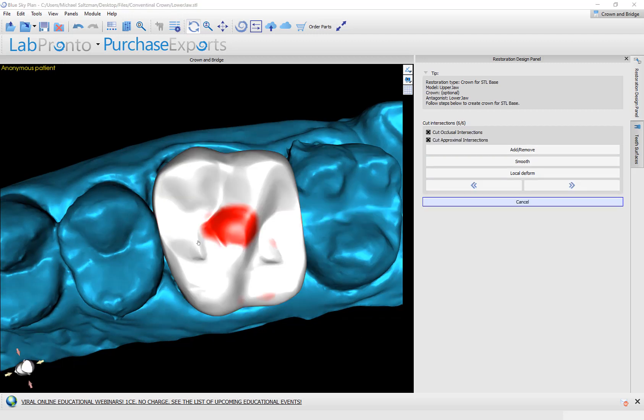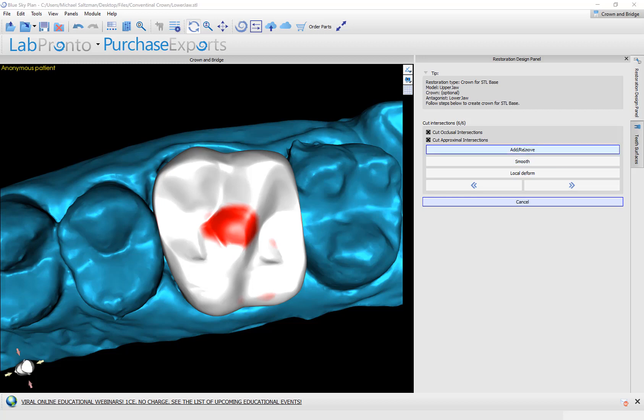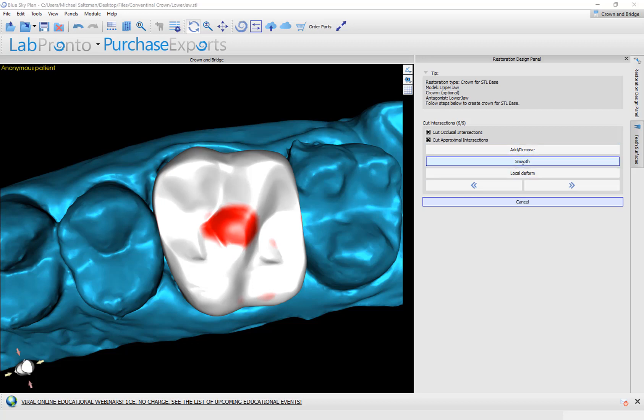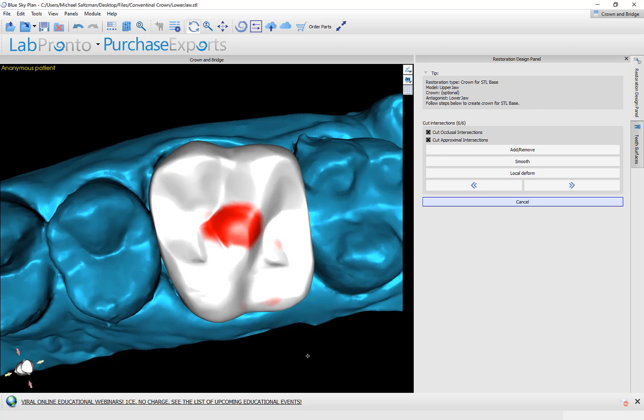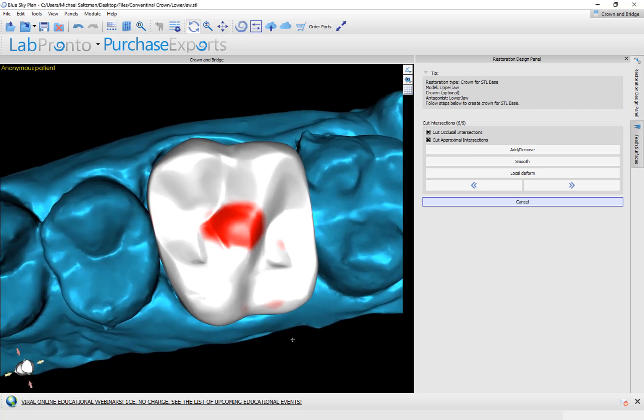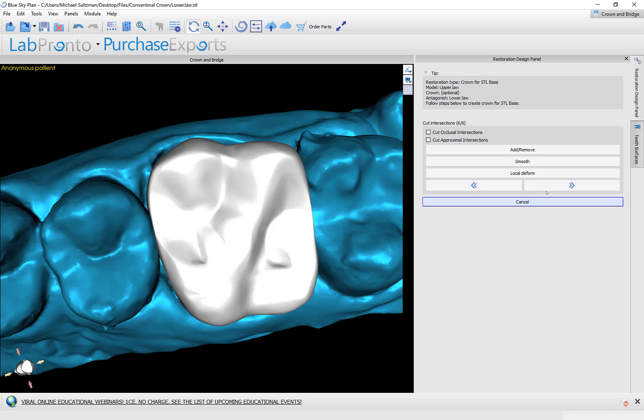And in our last step, the software showing the contacts, we could choose to leave them as is. We can now choose to continue using the editing tools to edit them, or we could check the checkboxes to cut occlusion intersections or cut the proximal intersections, in which case the software will just cut them away. So we have the different options of either addressing it ourselves, leaving the contacts as they are, or having the software cut that. For now, I'm going to uncheck these checkboxes, click next to finish up the process.